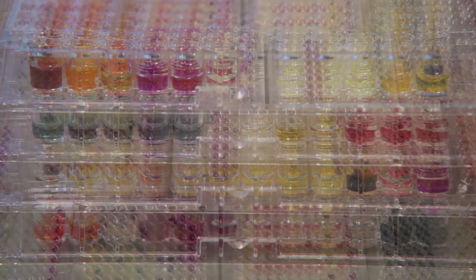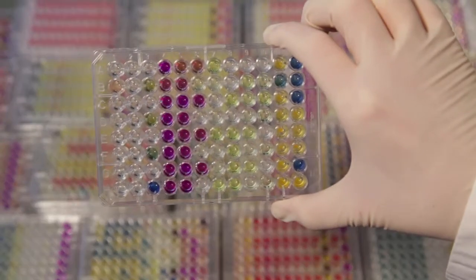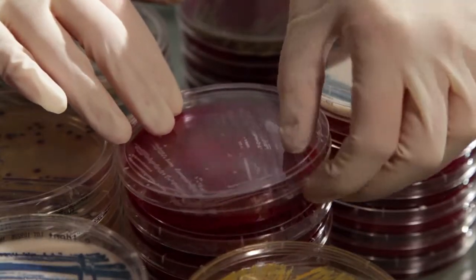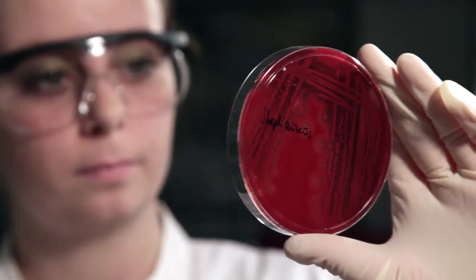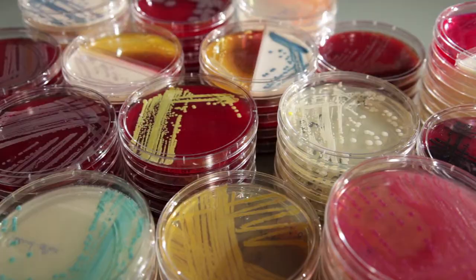In total, 400 clinically relevant species of bacteria and yeasts can be identified. The system design reflects the requirements in routine diagnostics like gram positives, gram negatives, bacillus species, yeasts and others.